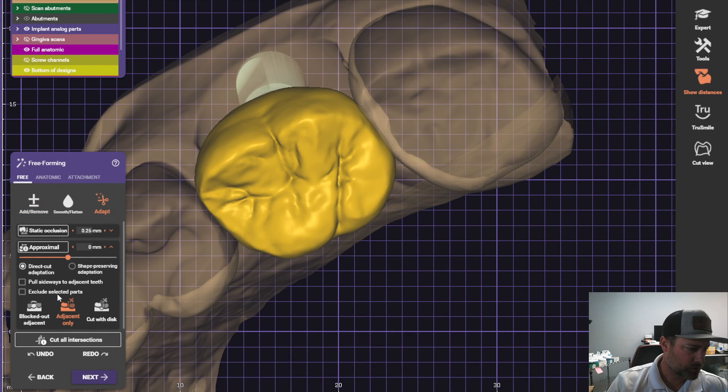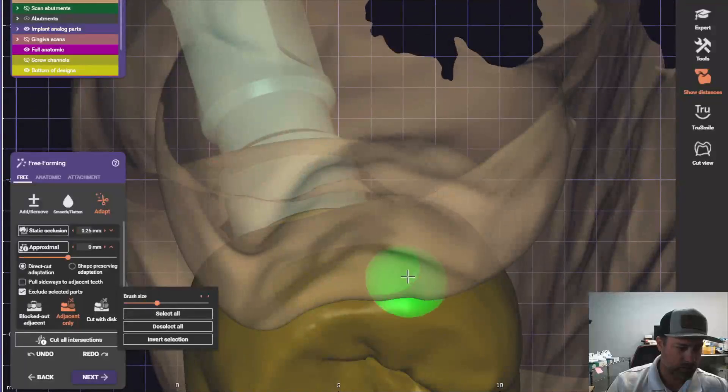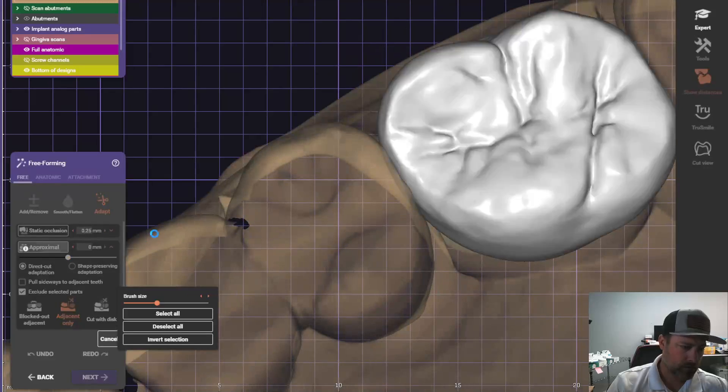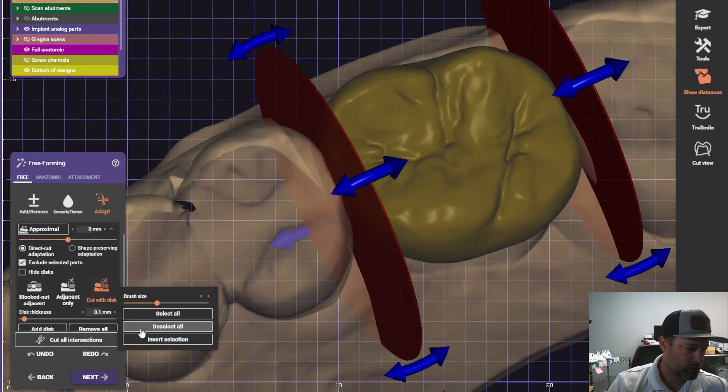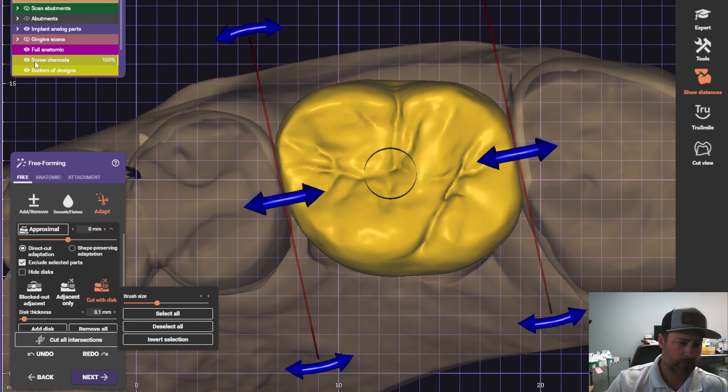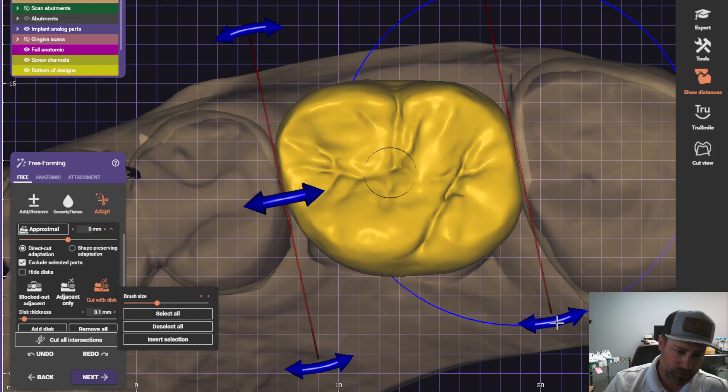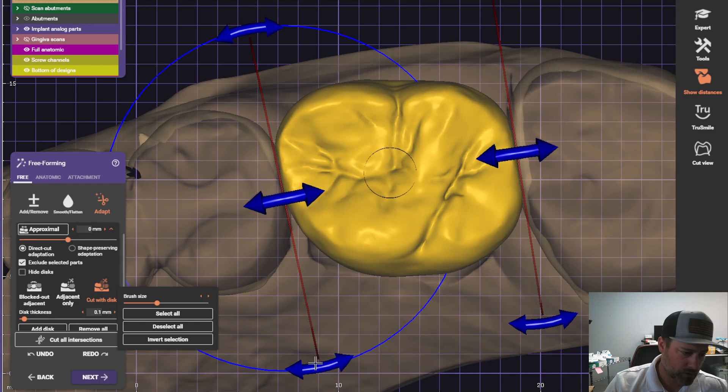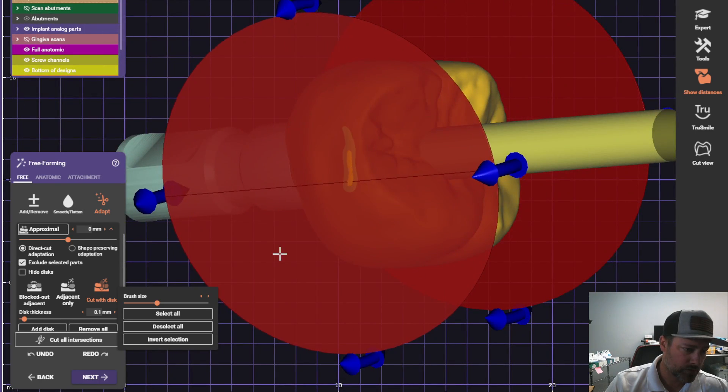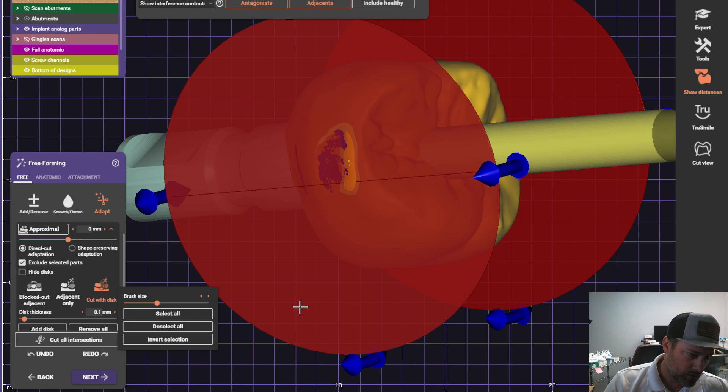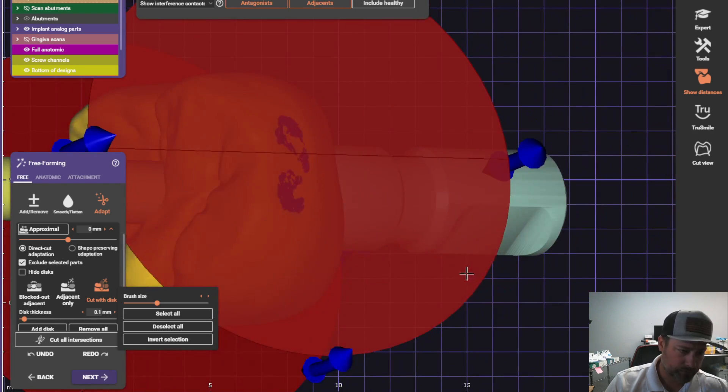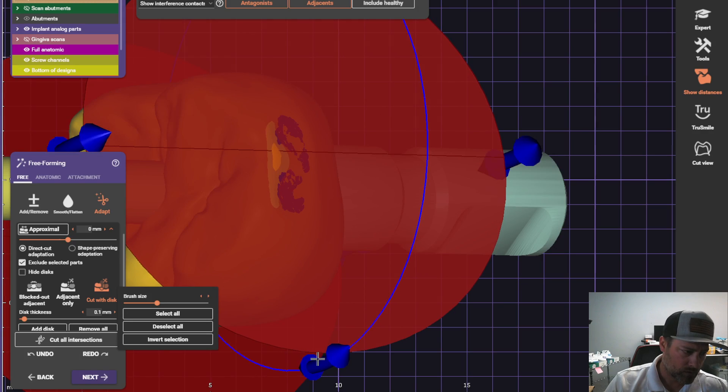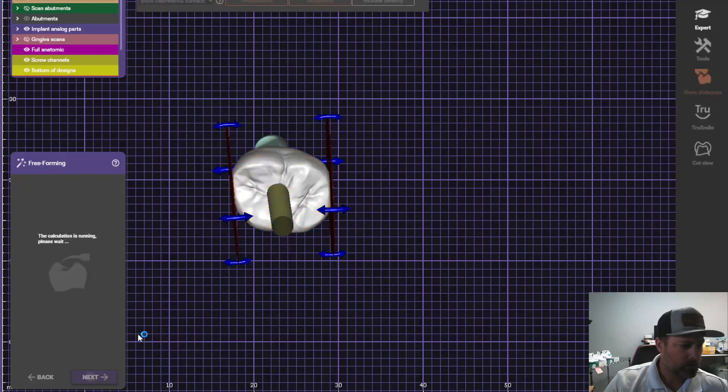Since this is a screw-retained crown, we've got to make sure that we use the disc. And that's this right here. It's already set up as the same view as the access hole, the same insertion direction. So don't hit these arrows right here, just do the side ones. And that'll help you get rid of any undercuts underneath the or any areas underneath the contact that'll hang that with the crown. Okay. So we can just cut. Okay.